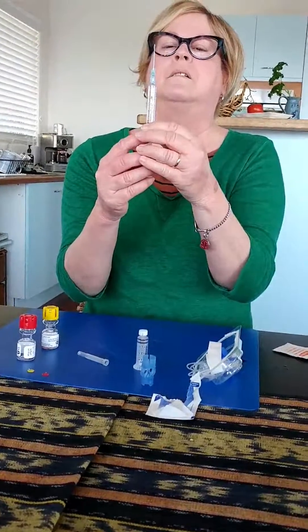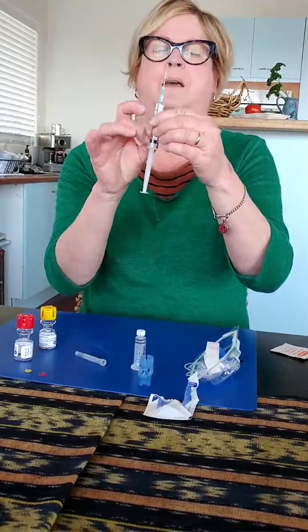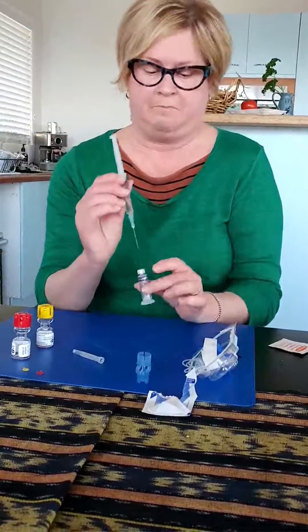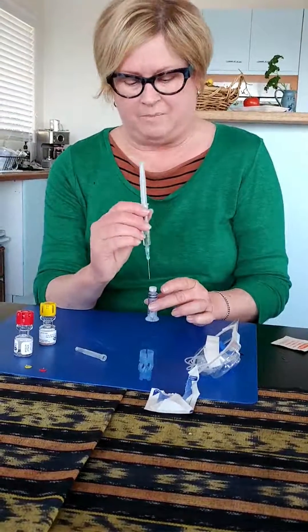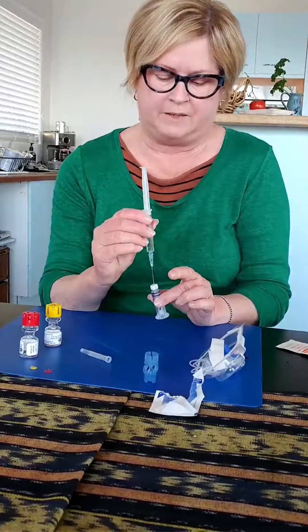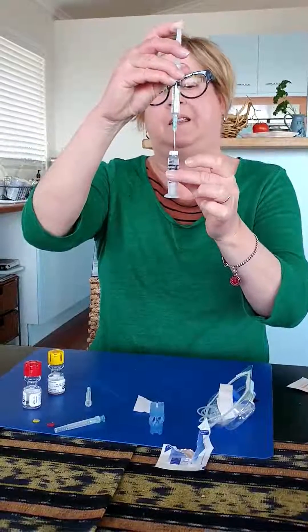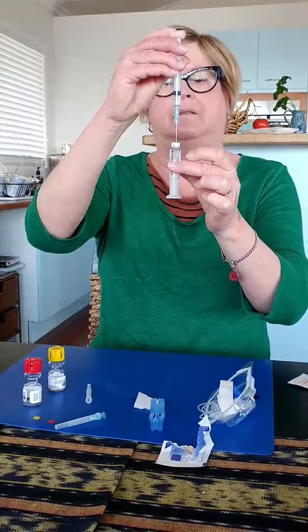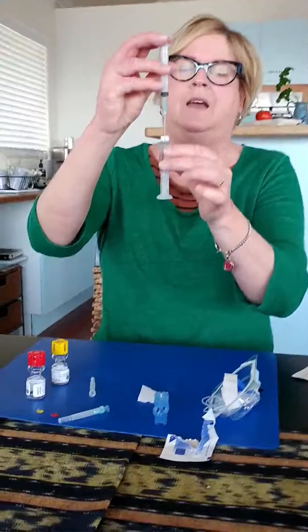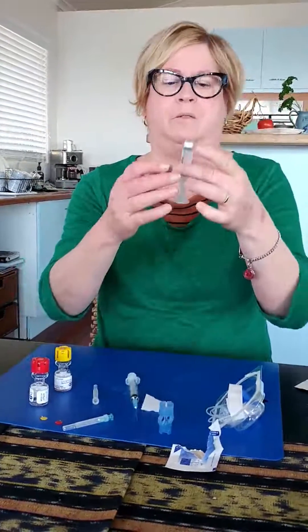Solution comes out the top of the needle, so that's all ready now. Tiny, tiny little champagne bubbles are okay, so that's alright. You can push this down now and load the reservoir. You have to hold it off the table because if you put it down, the stopper prevents it from filling. So you've just pushed that down gently into the top of that, then push down and fill. You can see the bottom push down until it's all filled in there. You don't want any air at the top of it, so at this point I just draw the needle back a little bit and suck out that last little bit until all the air is drawn out. That's perfect — no little bubbles or air pockets in there at all.